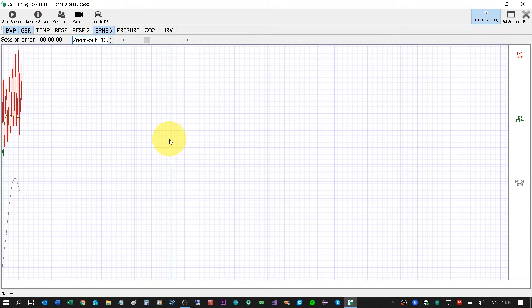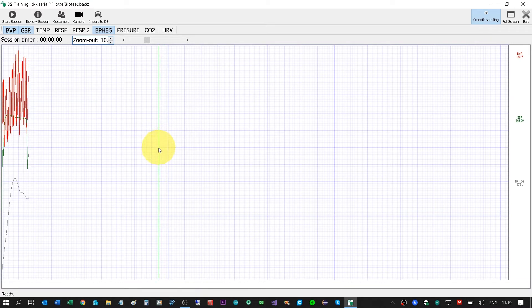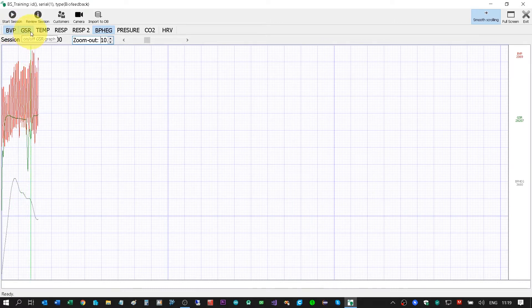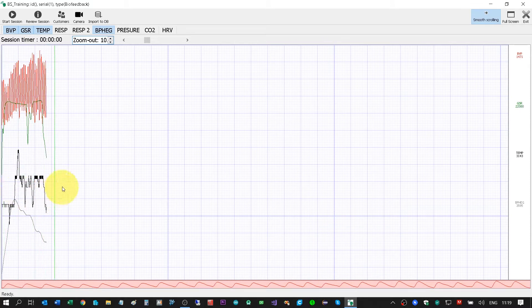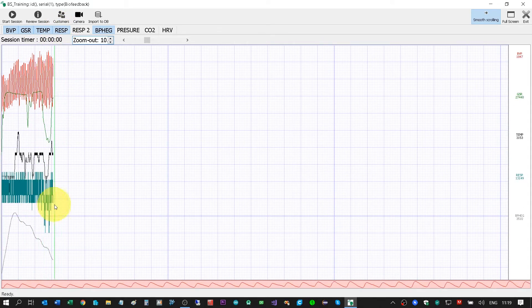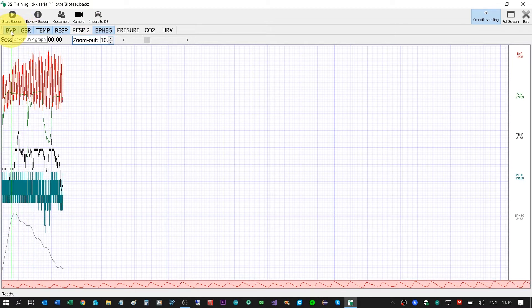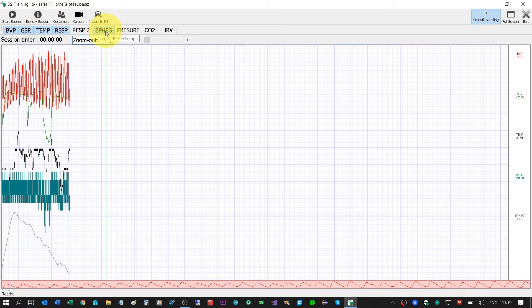As a result, immediately I can see on the screen all the signals arriving from the hardware. Blood volume pulse is the heart sensor. GSR is the two electrodes. Temperature is the temperature sensor. Respiration is the respiration belt, and blood pressure — these are the four sensors.